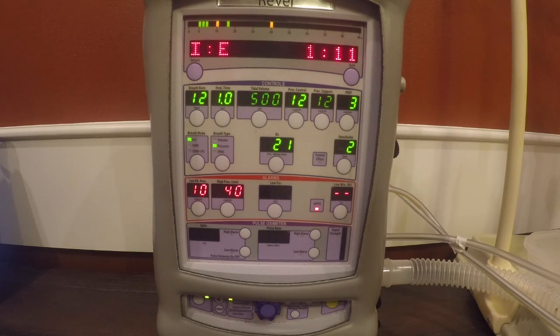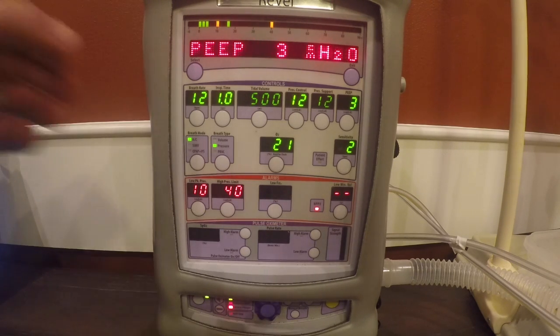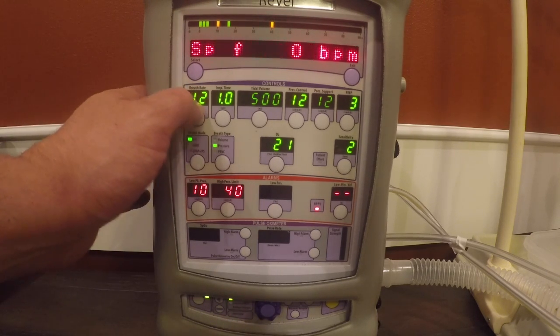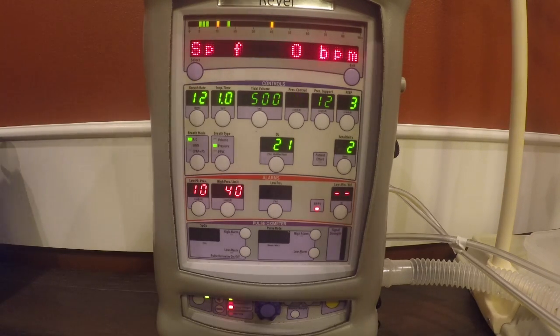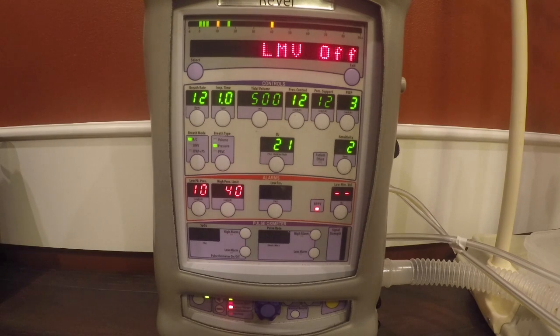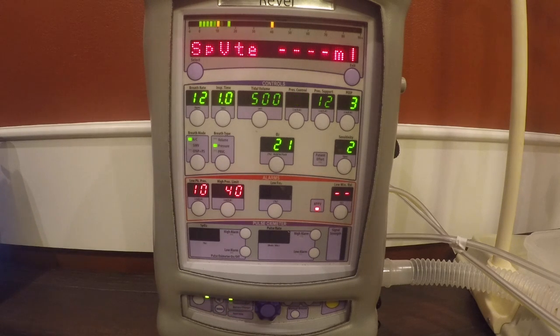Again, very, very important to always start in the NPPV mode. Always select your backup rate, right? It's not an apnea rate. That apnea rate is defaulted at assist control at 12. But set that other rate because that really will help the patient. It will assist them. Remember to always set your flow termination to 35 to 40% and set your time termination to match your I time, and you should be golden.